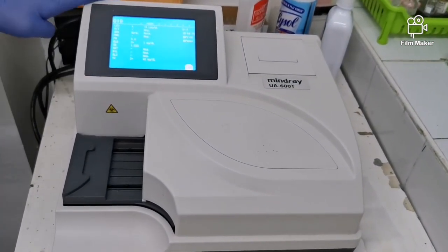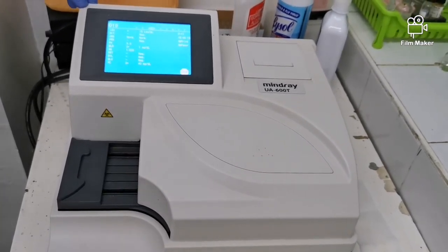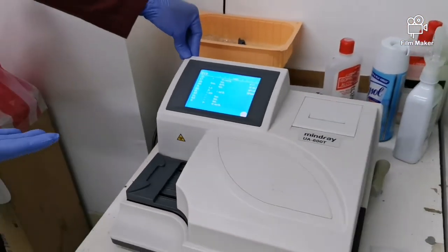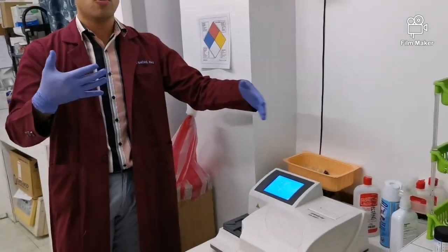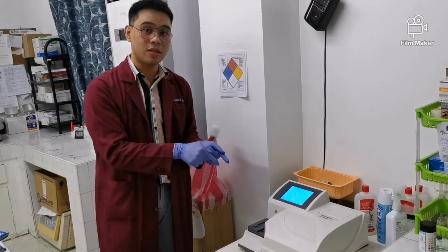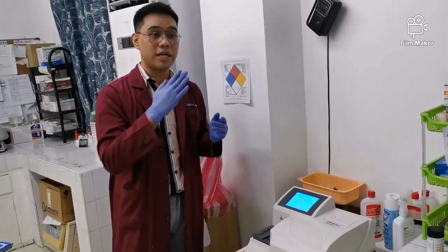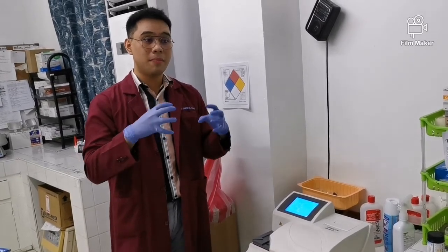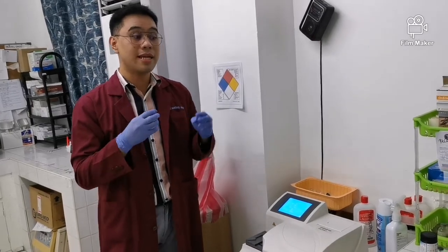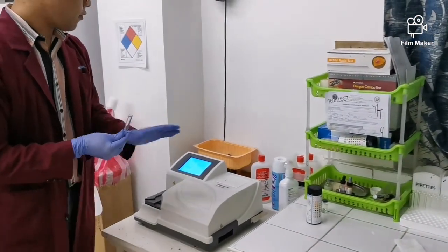And yung principle naman nito is reflectance photometry. Okay? So, the light reflected is inversely proportional to the analyte that is present on our test pads. Okay? So, ibig sabihin, kung mas marami yung na-reflect na light, mas kaunti yung analyte na present doon sa ating dipstick or sa ating pad. So kung mas kaunti naman yung reflected na light, ibig sabihin mas concentrated yung substances natin doon sa pad. So mas maraming substances na nasa urine natin. So ayun, babalikan na lang natin yan mamaya for its result.